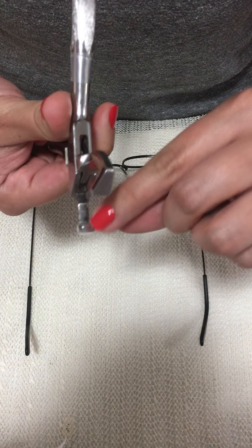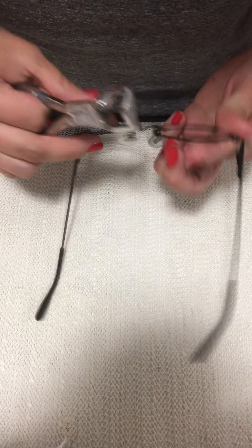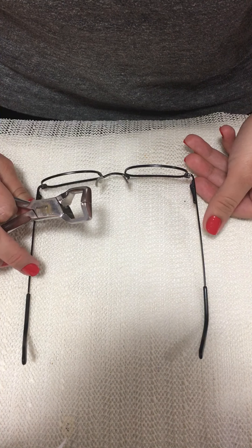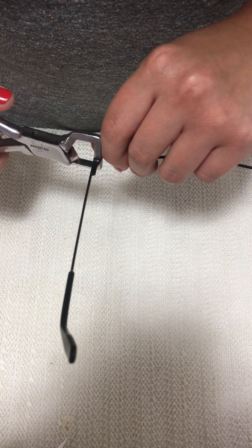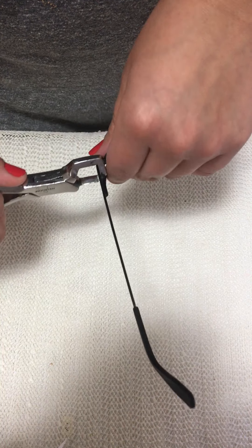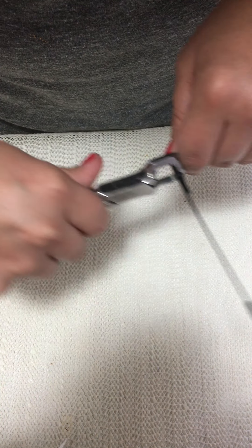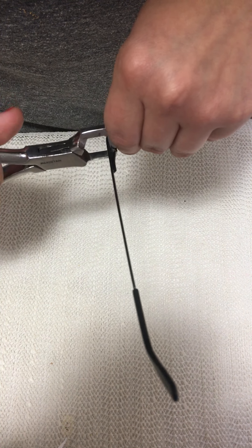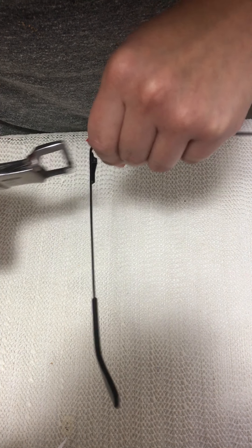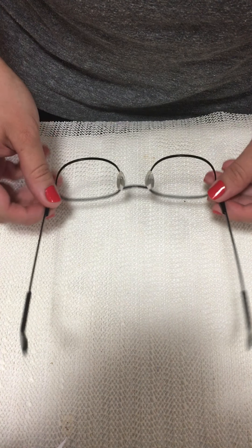To fix this I'll use the wide jaw angling plier. The angling plier has a little hole that goes on the dowel hole, and the pressure goes to the front. Because it's wobbling to this side, I'll start on this side, apply pressure with my fingers so the frame doesn't get another misalignment, and push force going down — rotating it like this. Now it's a lot better and not wobbling.